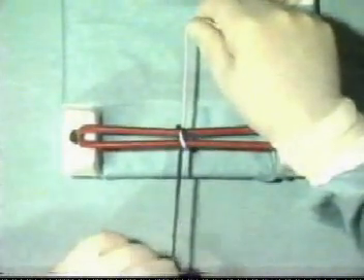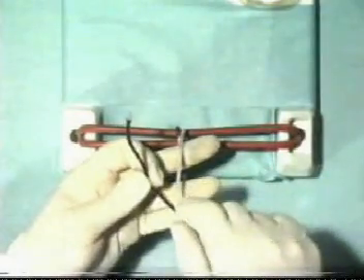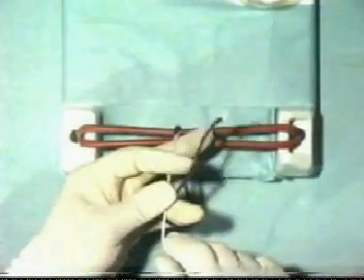It is essential in a reef knot that your hands cross with each knot, and that alternately an index finger knot and a middle finger knot is tied.